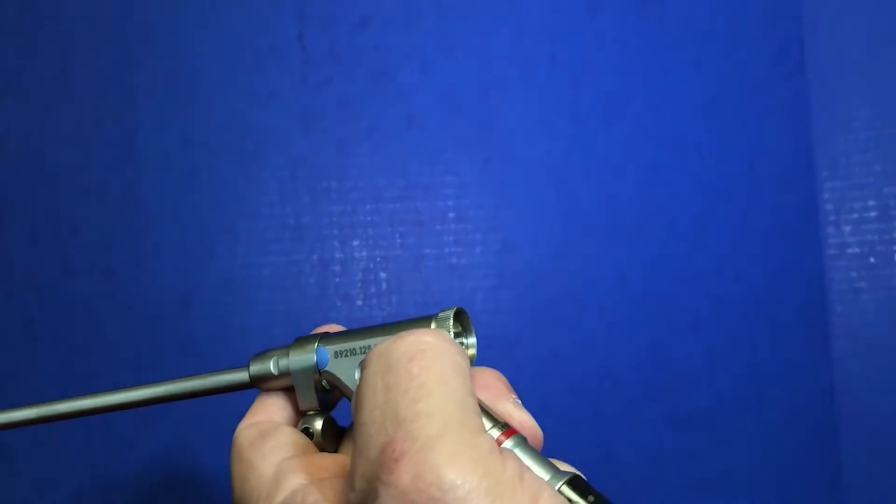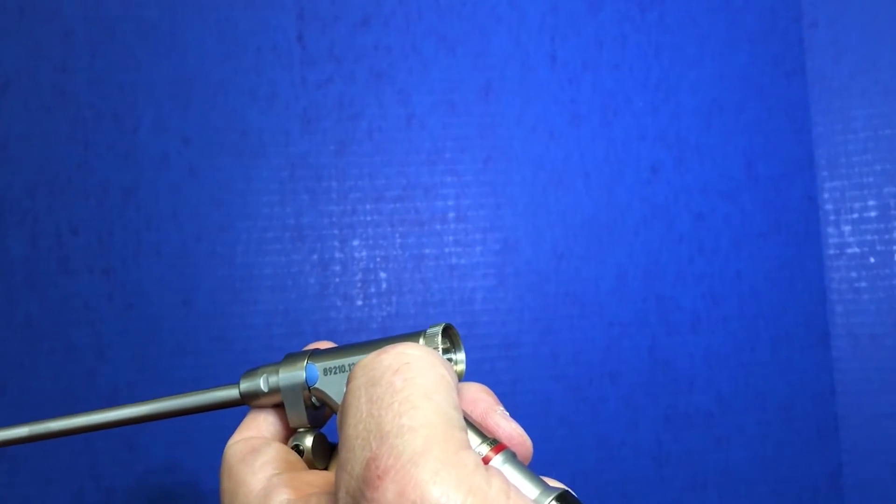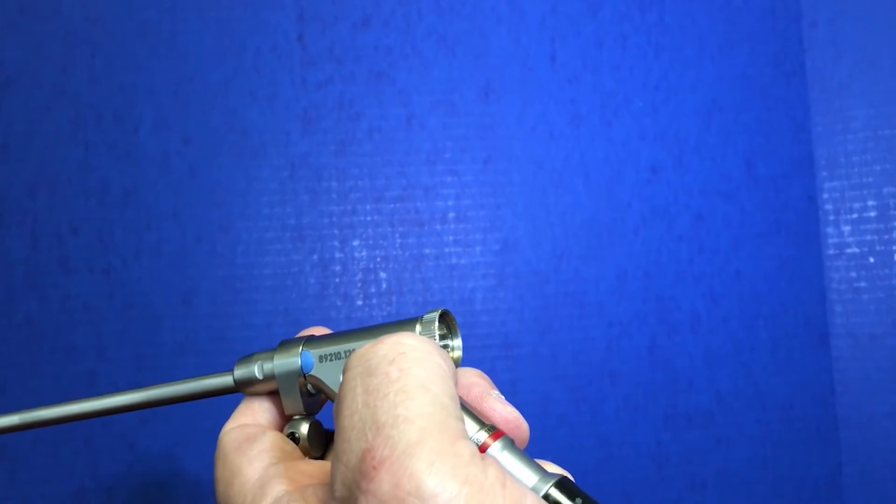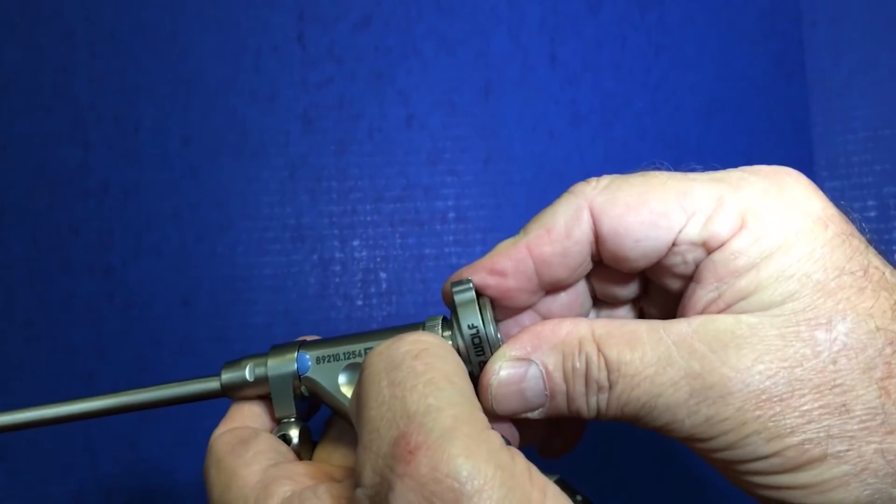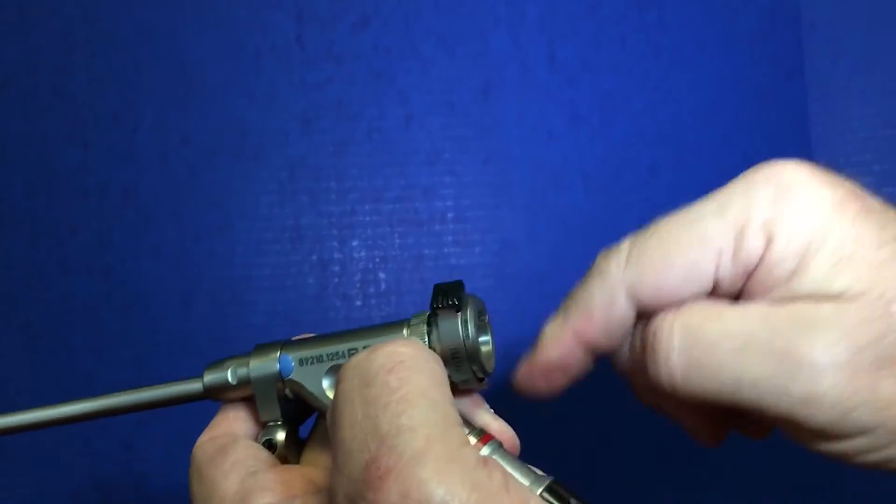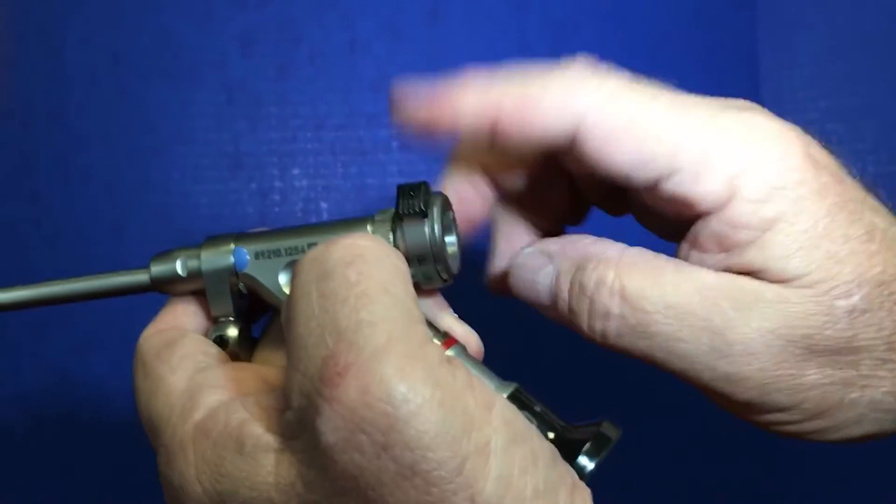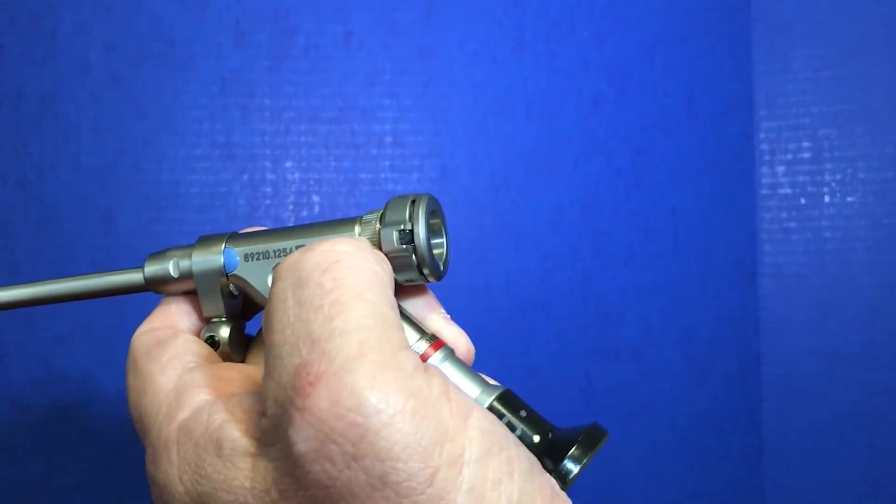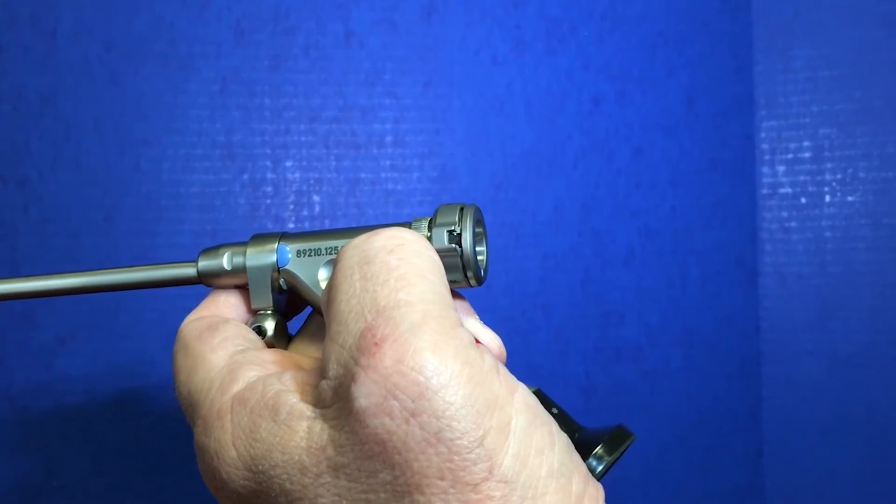So this is for one set of service. What's the next level? The next level would require several pieces to be assembled. The first is the attachment that basically screws onto that same component on the endoscope.